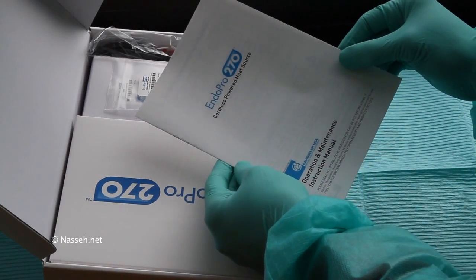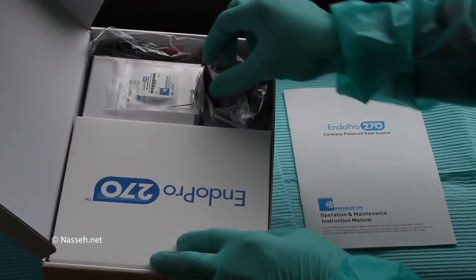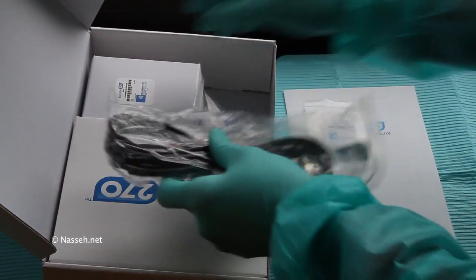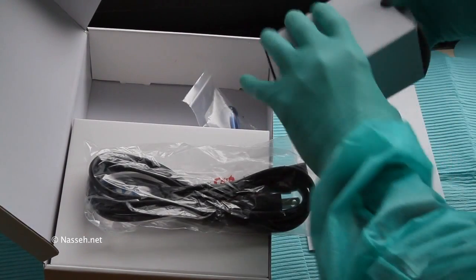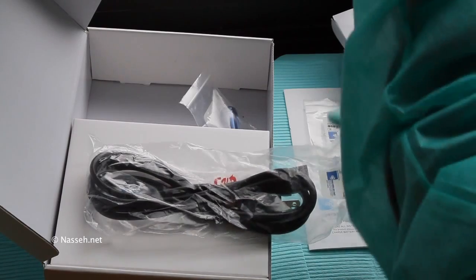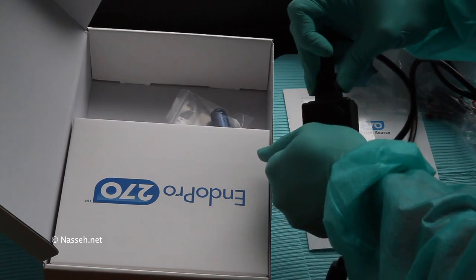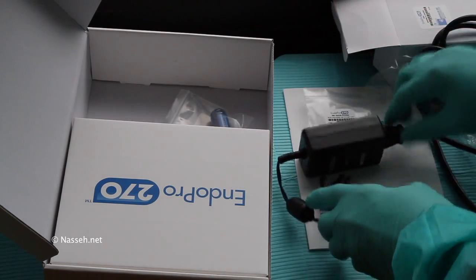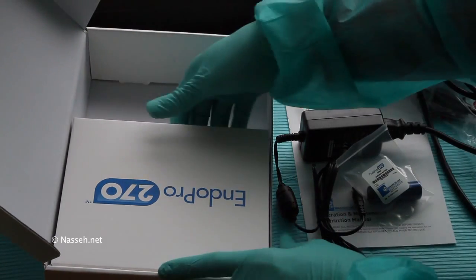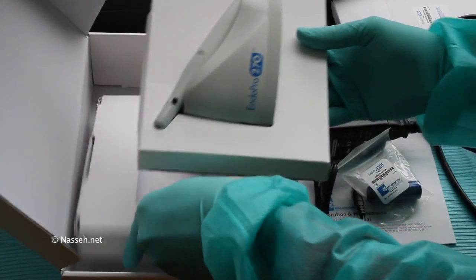Here's the end packaging of the unit. When you open the box, make sure you read the owner's manual. Inside you will find a tip, the power cord, and the adapter, the battery pack, the charging base, and the unit.